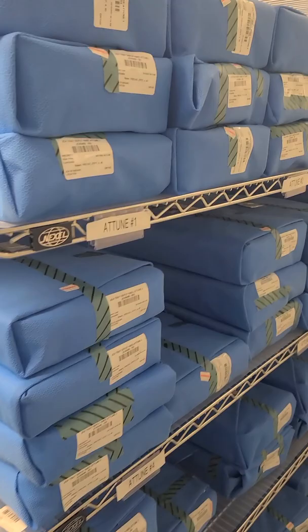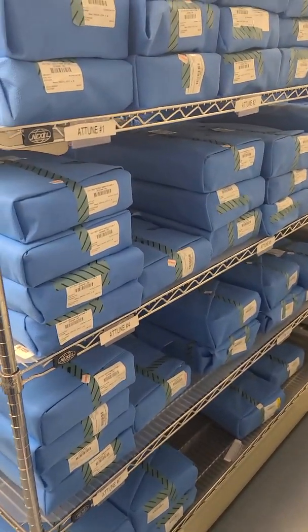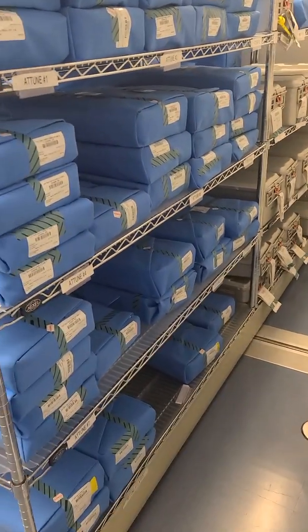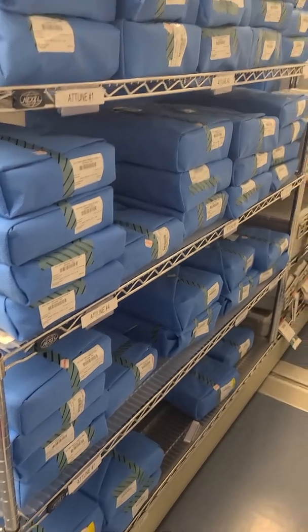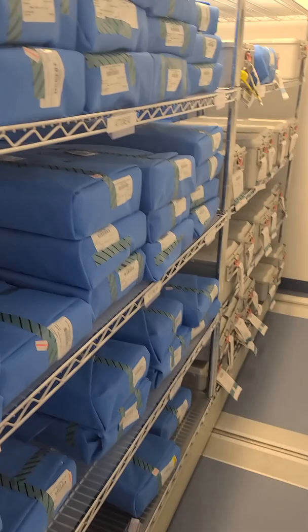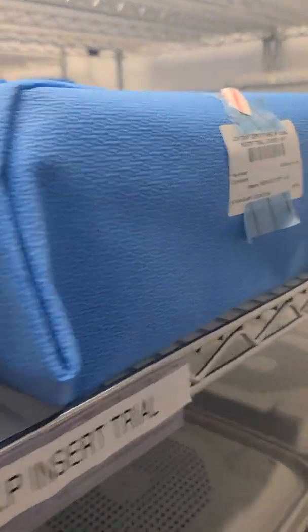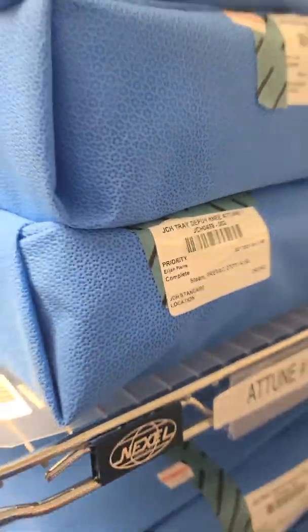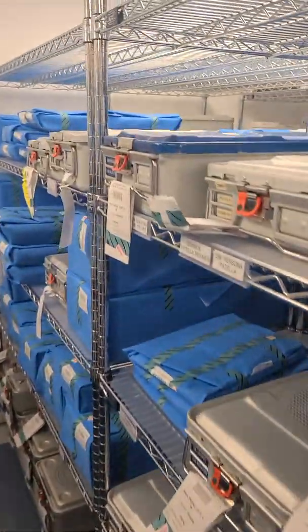So that is storage in a nutshell — the beginning. Are we doing it by what is recommended? No. Do a lot of facilities? No. But there has to be a risk assessment that the facility does to determine if there is a risk. Because sterility is not guaranteed, we can determine that we're not damaging packages when stacking them or putting heavy items on top. But this specific wrapper tells you that stacking is not recommended — a risk assessment should be done.